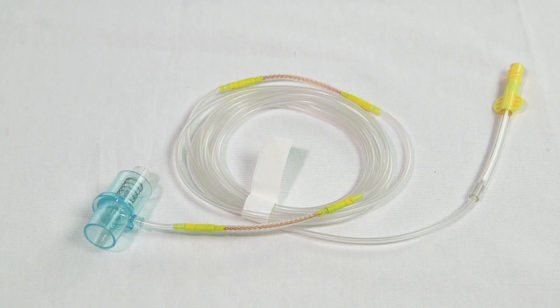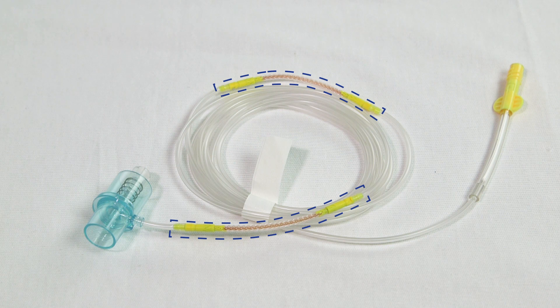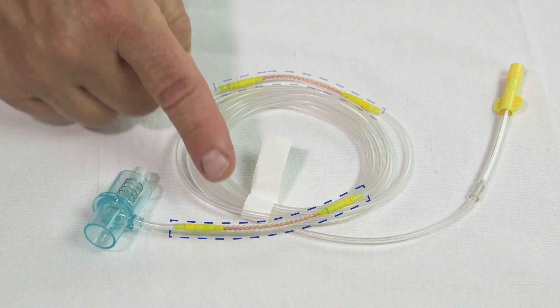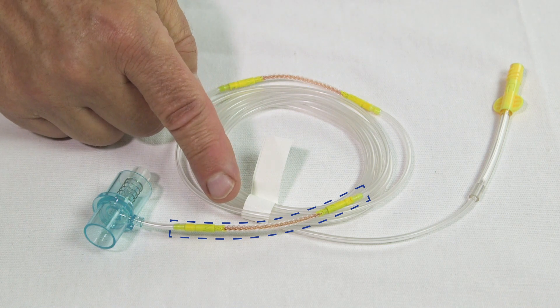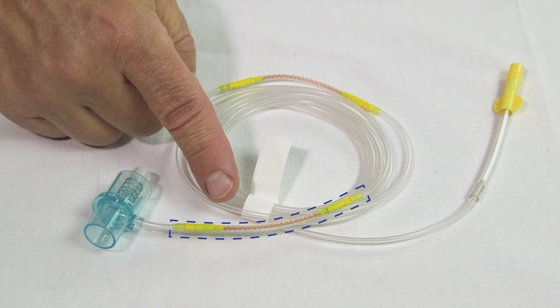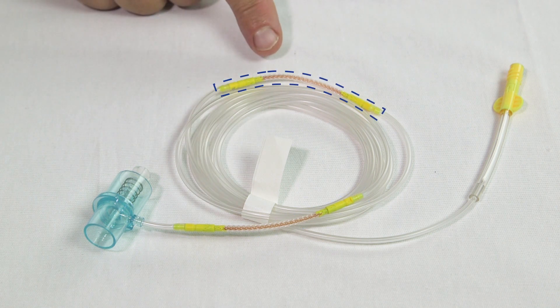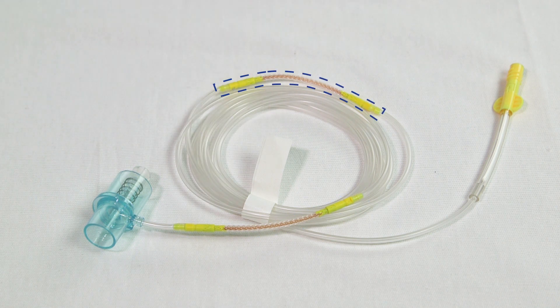The VitaLine sample line has two sections of Nafion tube. One should be placed inside the incubator high humidity environment and one outside for optimal operation.